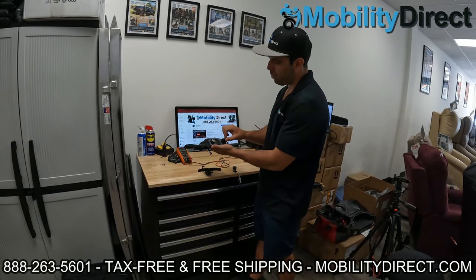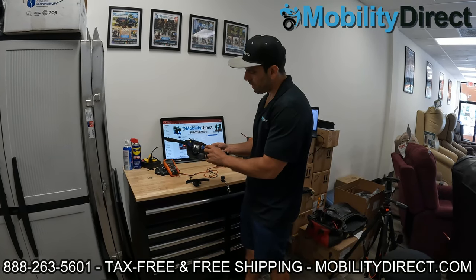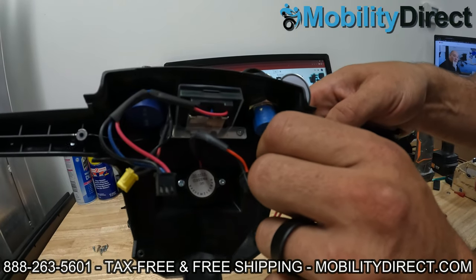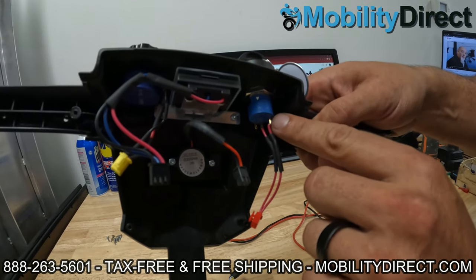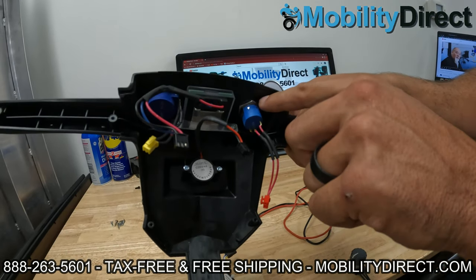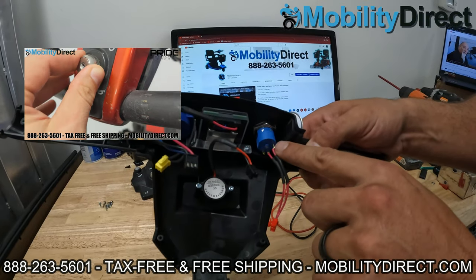So if you're getting power when you jiggle it around and it's turning off and on, or if you push it inwards or pull it up a little bit and it connects, usually that's due to the fact that these two wires connecting to the prongs on the back of the ignition unit are coming undone. Sometimes if you pull back on the heat shrink, you can see the soldering job coming apart. You'll want to re-solder it to the exact same two connectors it was originally connected to. You may also want to tighten the nut that holds it onto the dash or tiller assembly so it's nice and tight and not shaking around.